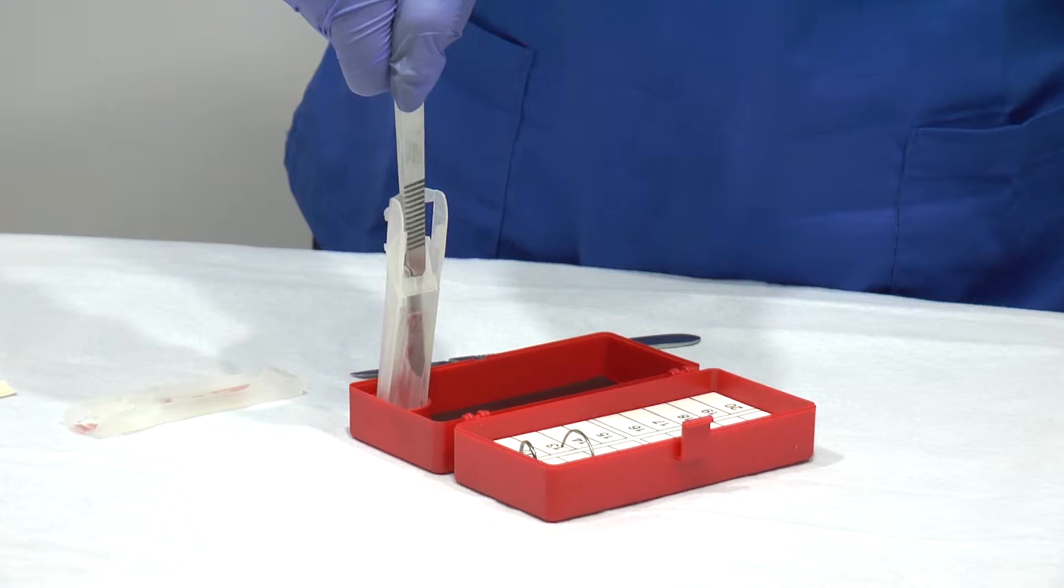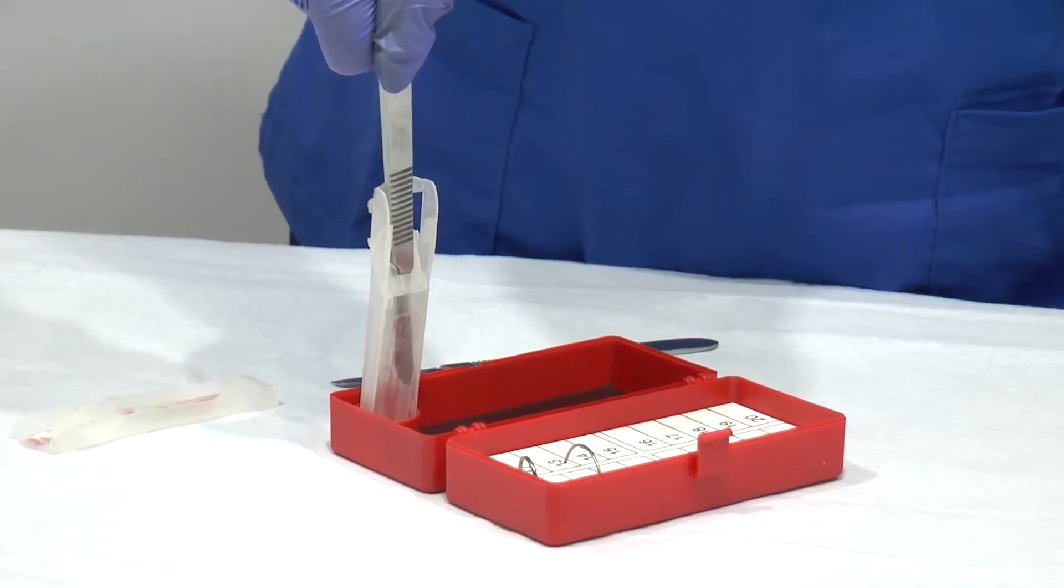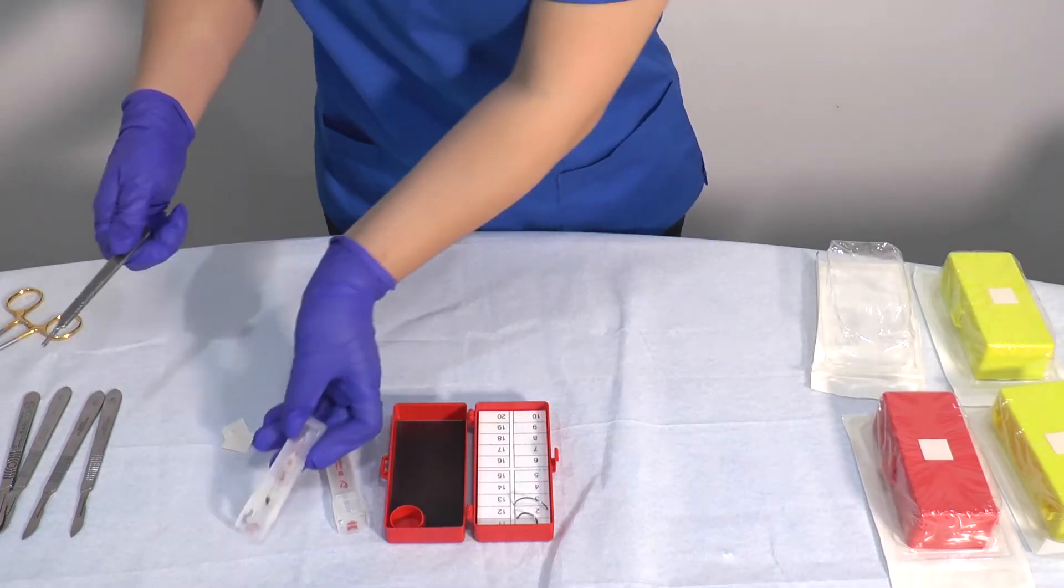The click sound indicates that the device has successfully removed the scalpel blade and that it is securely contained inside the cartridge. Remove the cartridge from the holder. It is now safe to use two hands to pull out the scalpel handle.